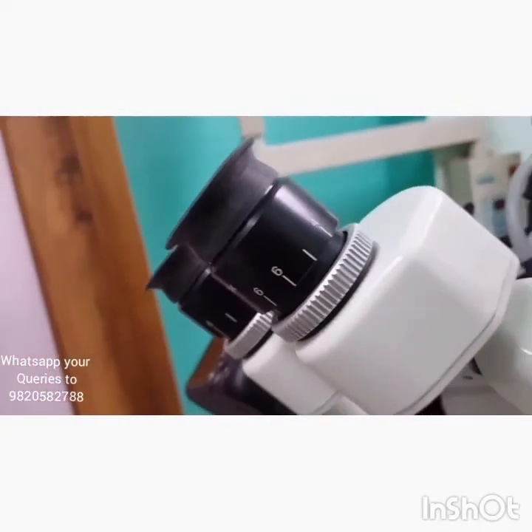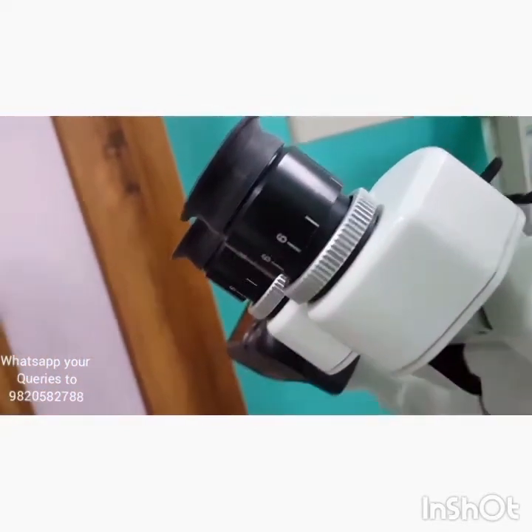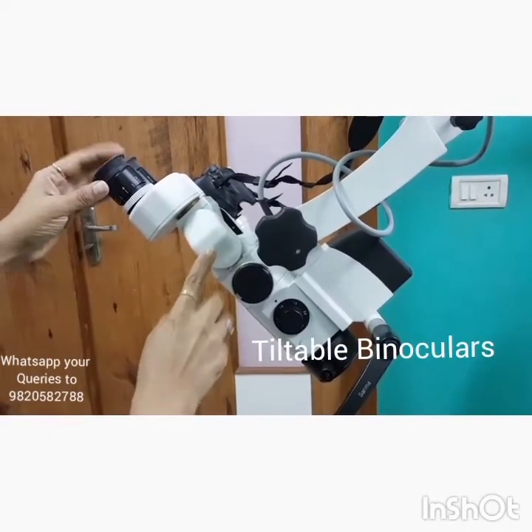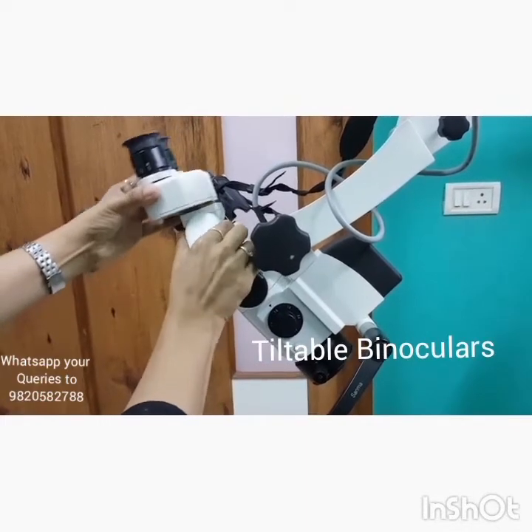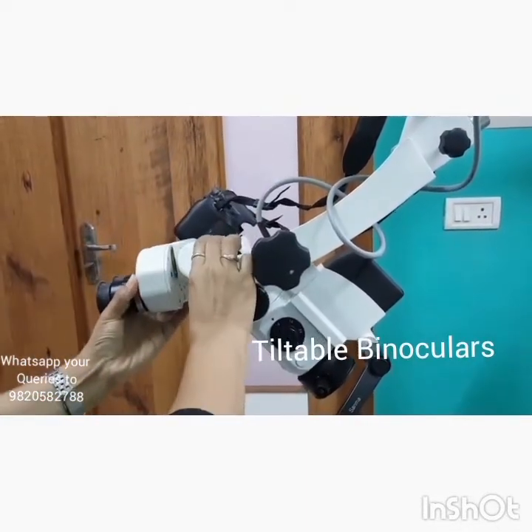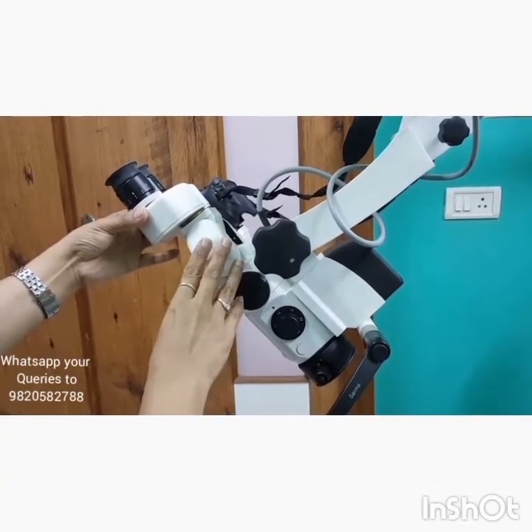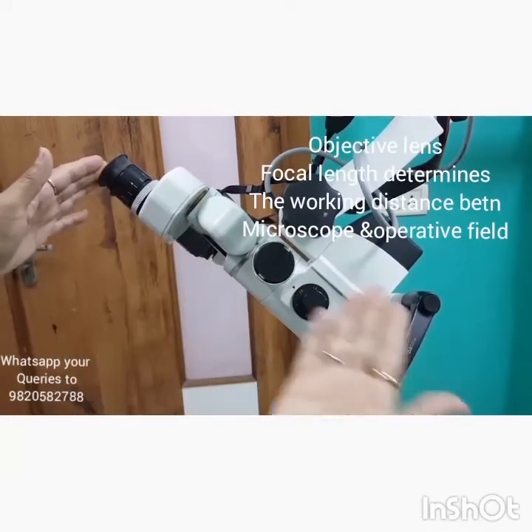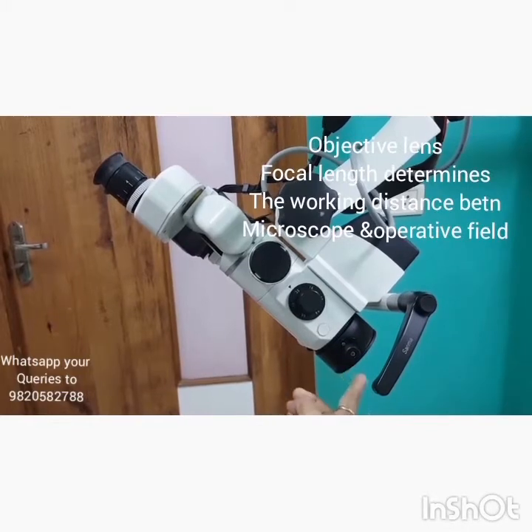The eyepiece itself has a magnification of 10x, and sometimes up to 12.5x. The eyepiece is mounted on the tiltable binocular tube, which is tiltable from 0 degrees to 210 degrees. This gives the operator the benefit of a comfortable spine position during long working hours. An important component of the microscope head is the objective lens.